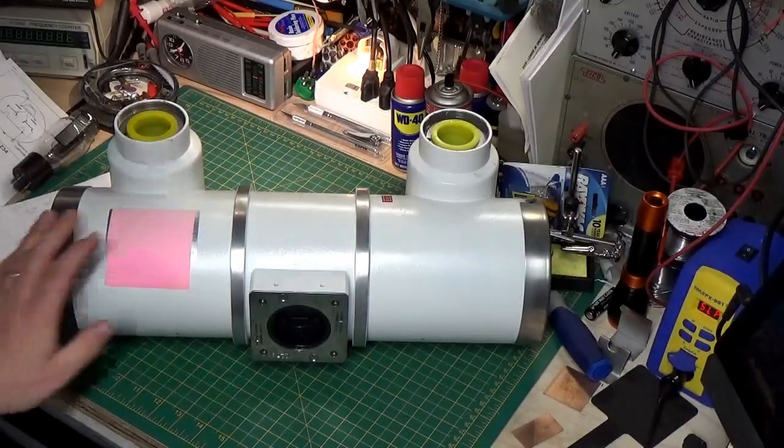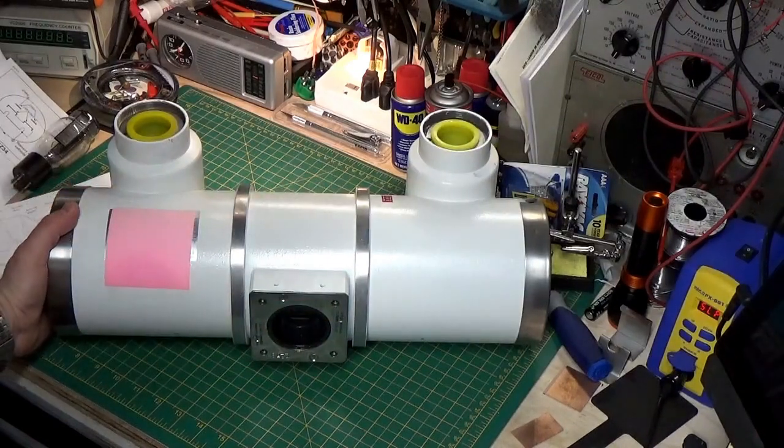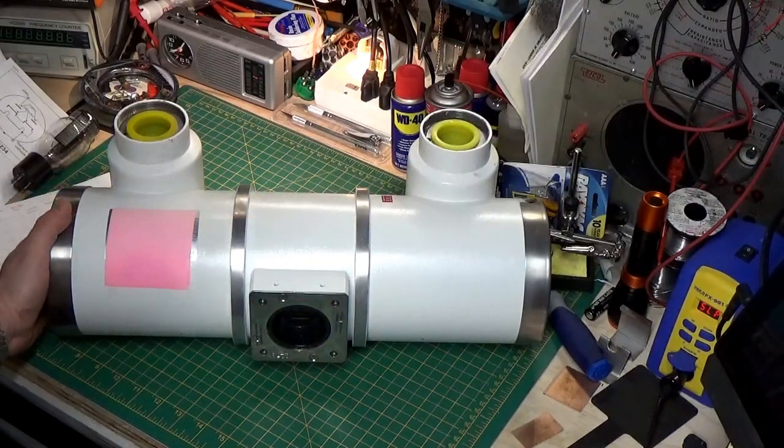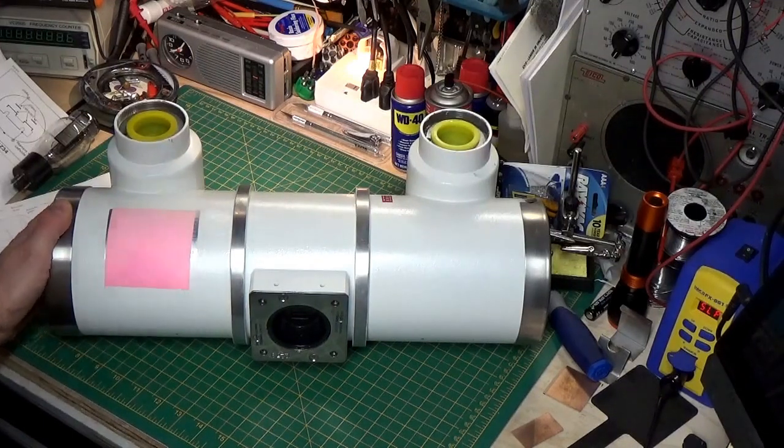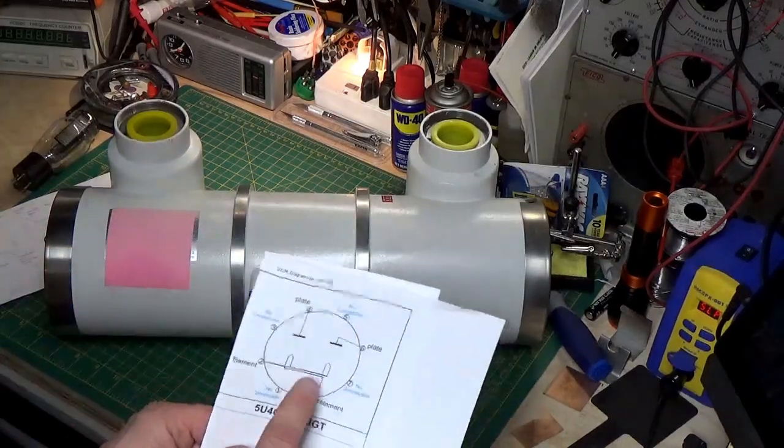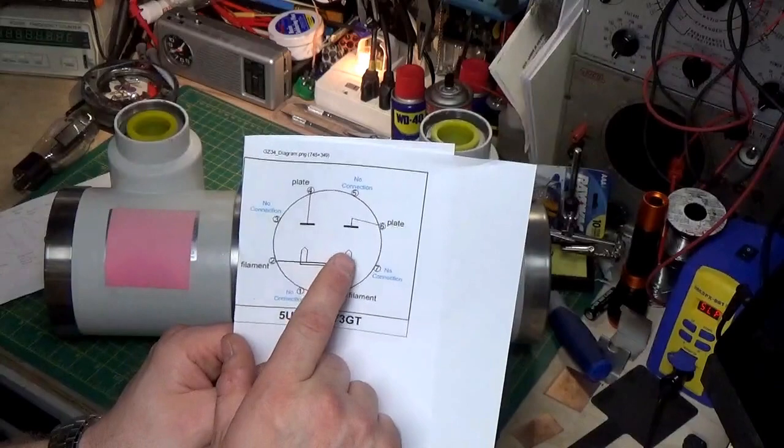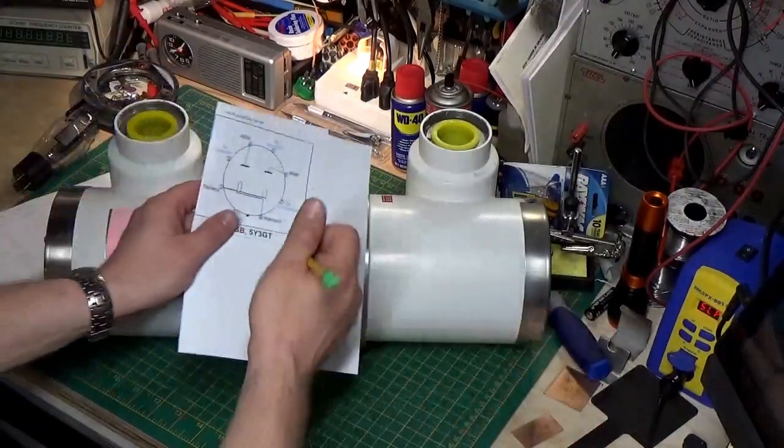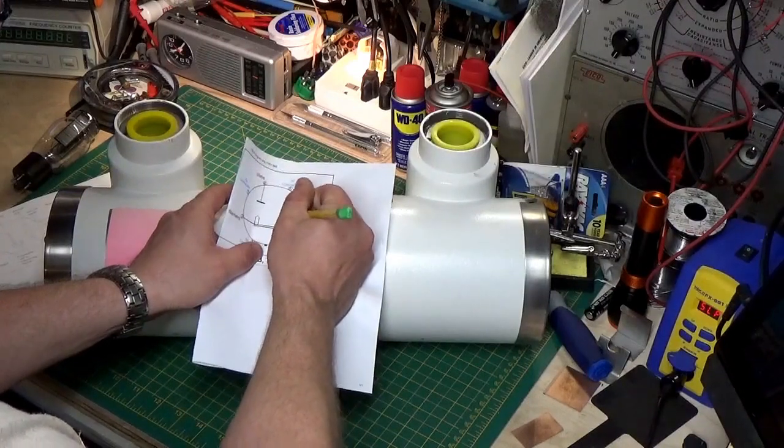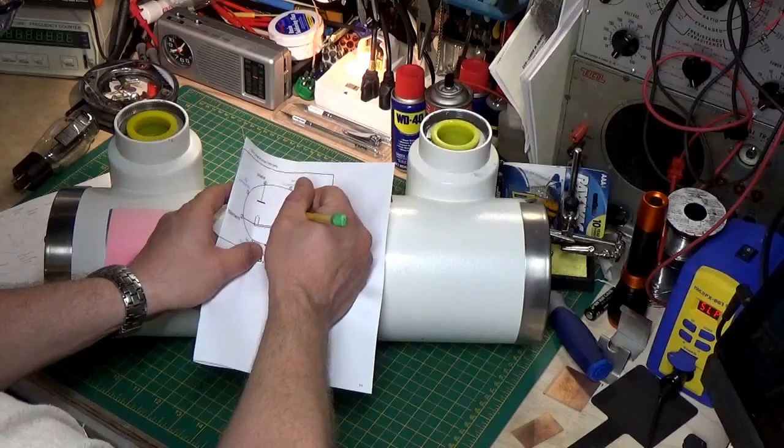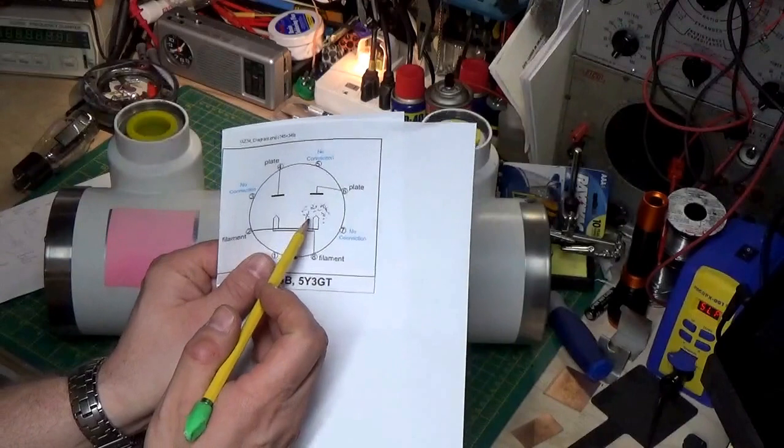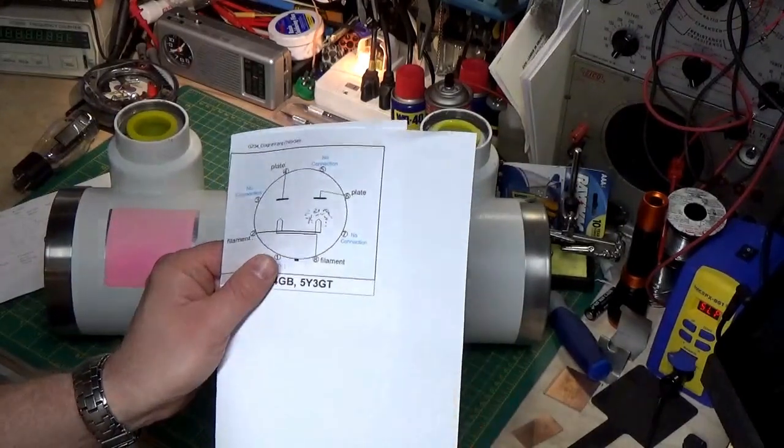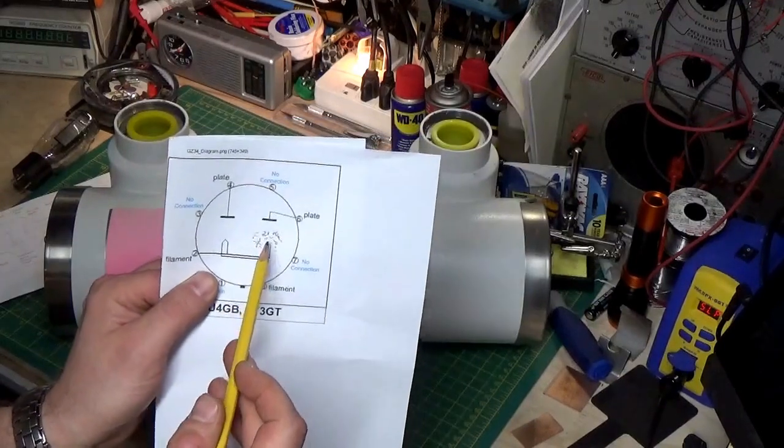Now, we don't use x-ray tubes as diodes, even though that's what they are and that's what they do. But there's another property, and this is what we take advantage of in this industry. And that is, whenever we work with a tube, when you heat up this filament, we get something around there that we call an electron cloud. So, you've got all these little electrons. And the heat, combined with the tungsten in there or whatever material that's made of, what we say, it burns off electrons.